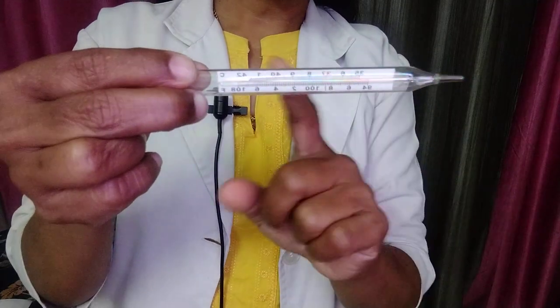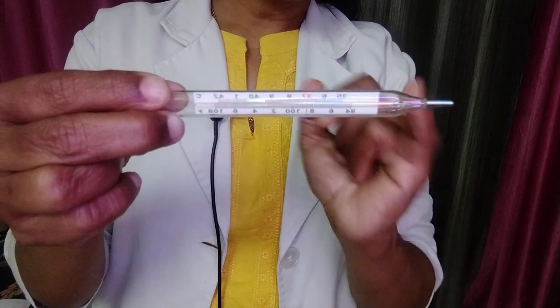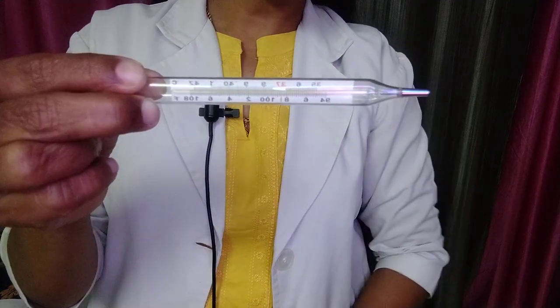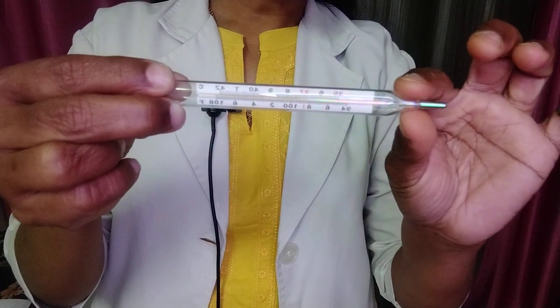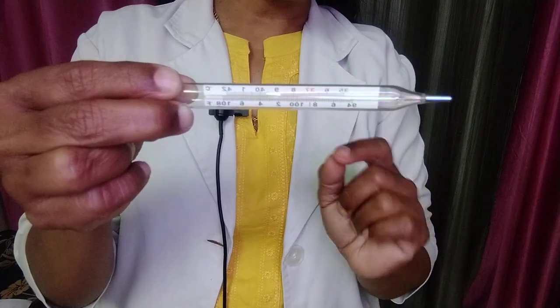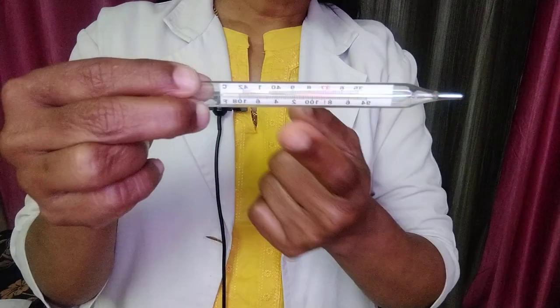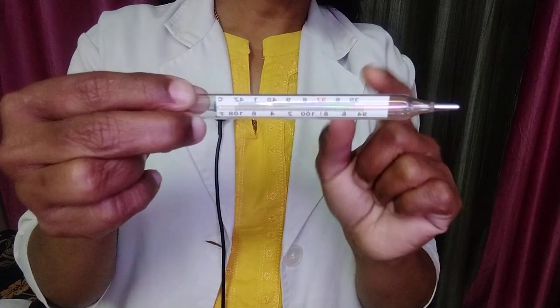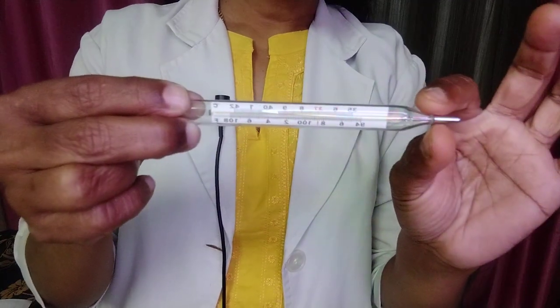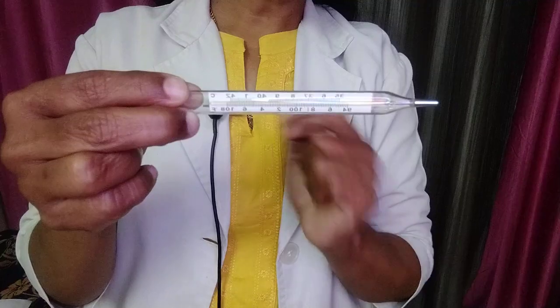These are all the parts of a clinical thermometer. One more thing: between the bulb and the stem there will be a kink. This is called the kink, or neck constriction. The reason for the neck constriction is that whenever you remove this thermometer from the site — oral or axilla — the mercury column will not fall down. That is why this neck constriction has been placed here, so the mercury column will not fall when there is a constriction between the bulb and the stem.